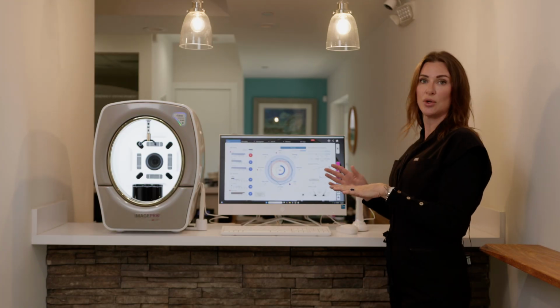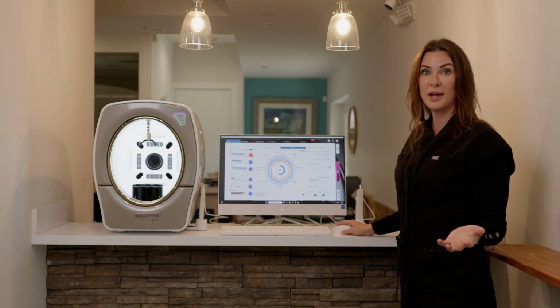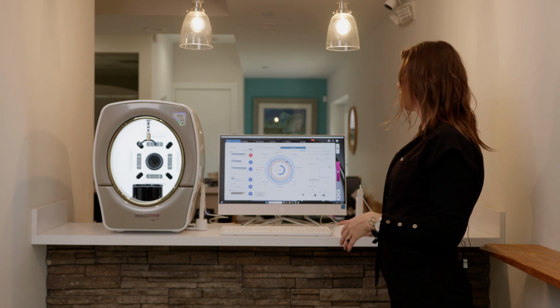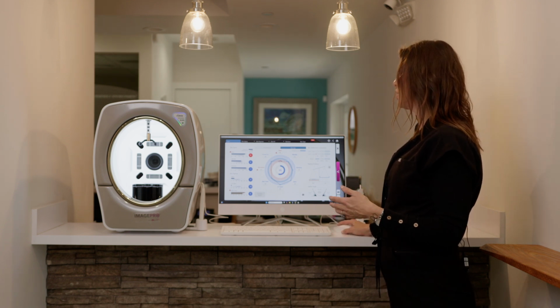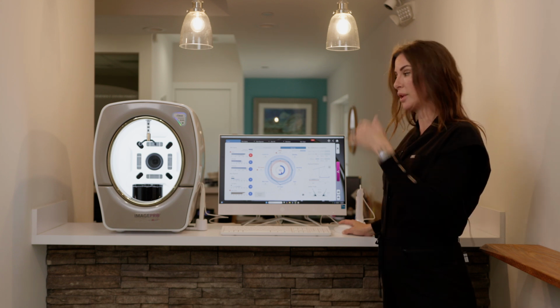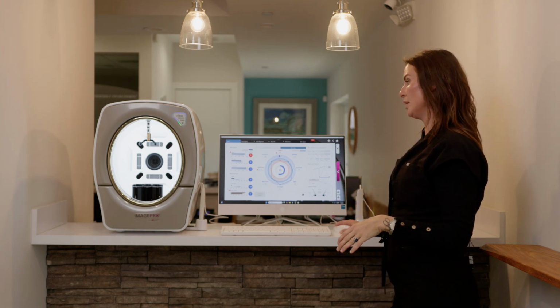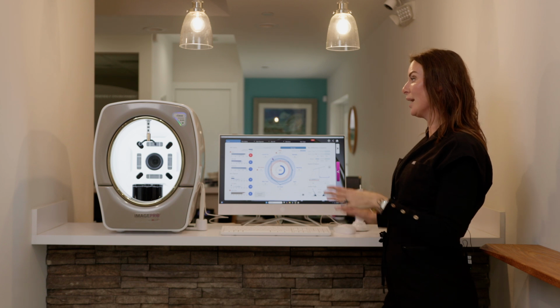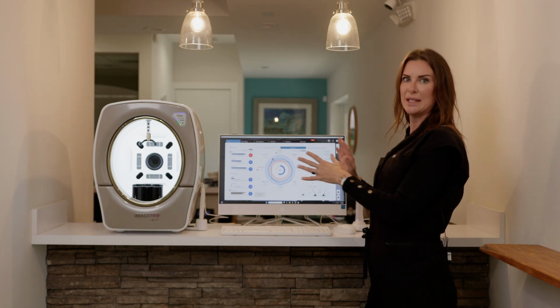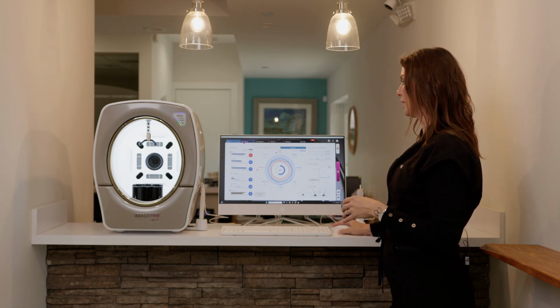So this is a summary screen. Anything in red needs to be addressed or is negative, right? Anything in blue is positive. So she's super young. She's actually doing better. It's rating her skin age younger than her actual age, which is amazing. But it does highlight the 2 main issues that you're going to want to address. I use this as a summary screen. So oftentimes it'll default here. They'll start to see things like, oh, what does that mean? What does that mean? Now I'm going to walk you through the actual analysis.